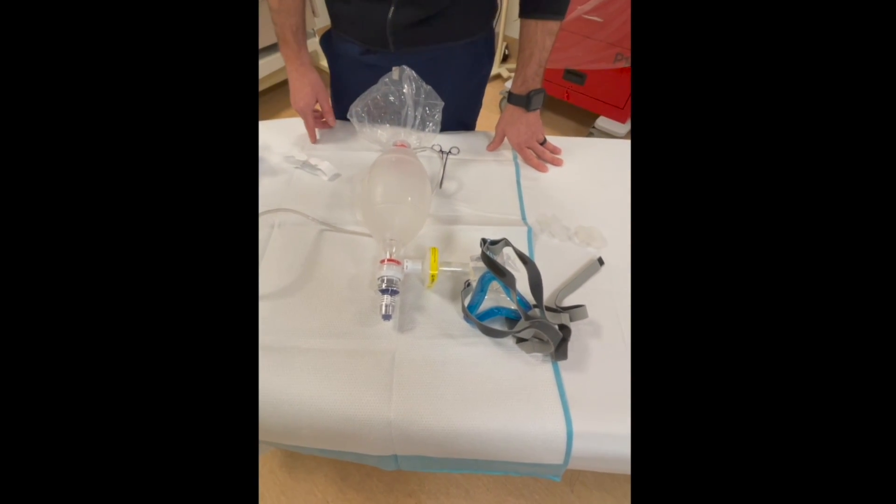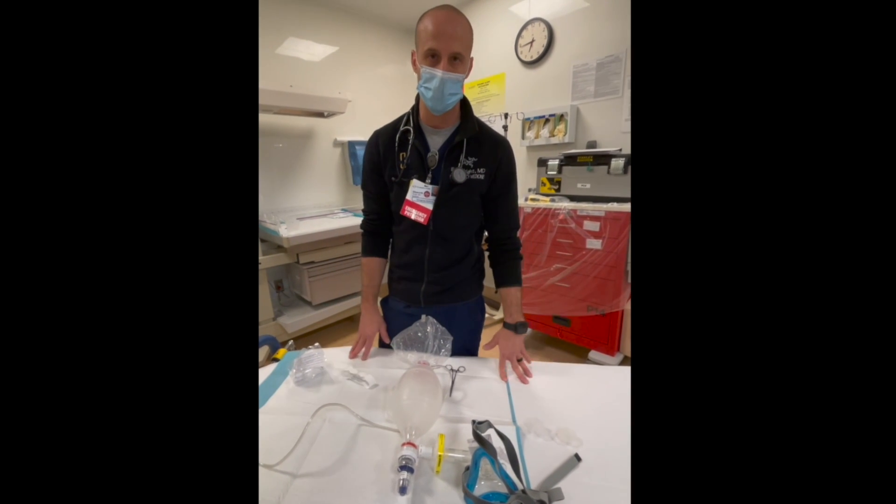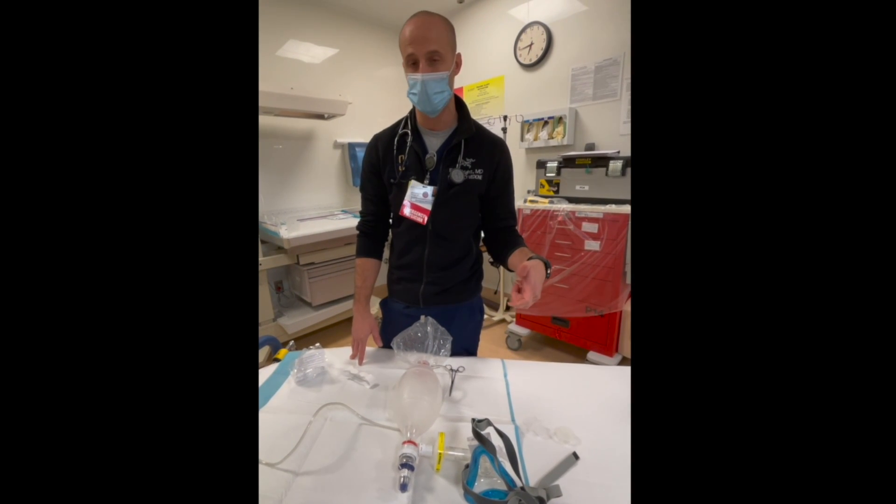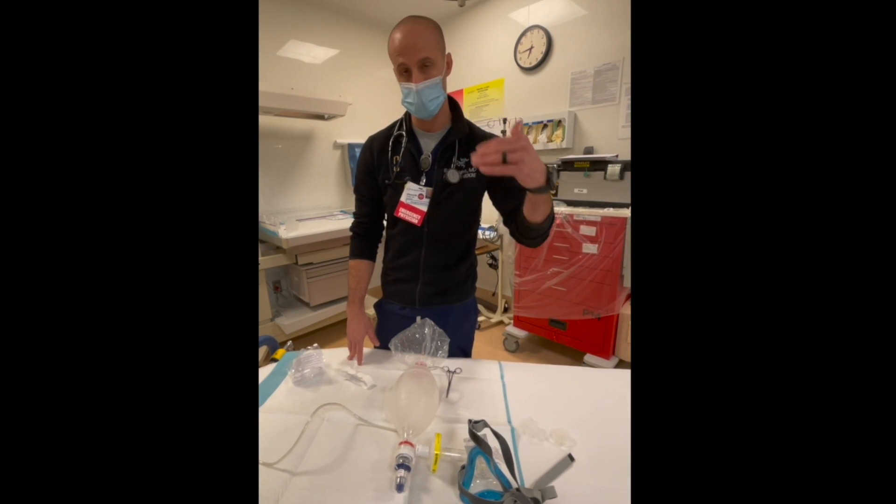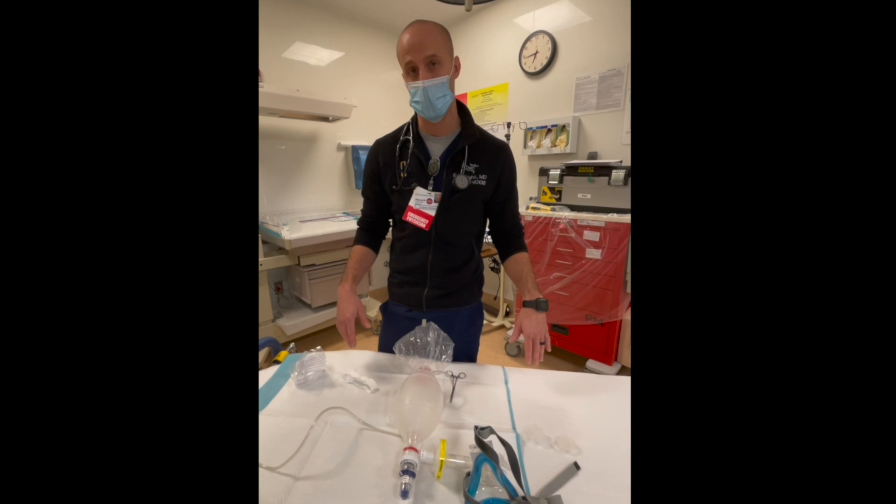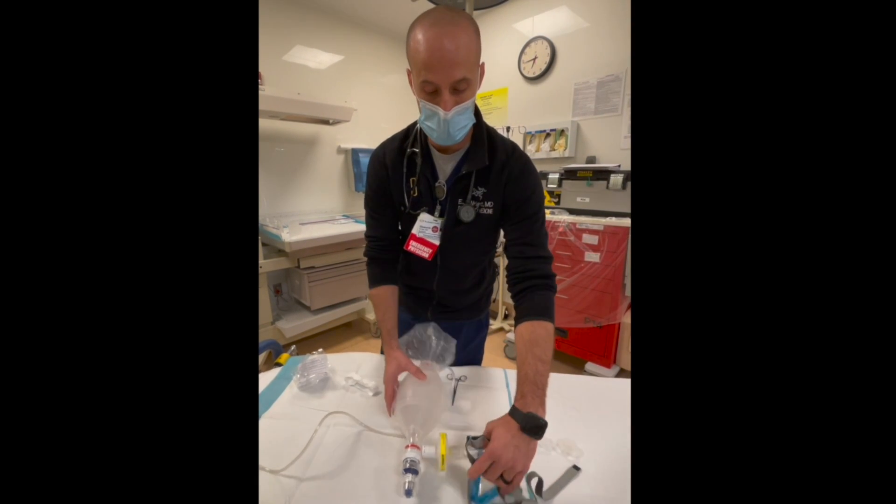This is a good utility when we're out of high flow and when we're out of actual official CPAP machines. Essentially this can just buy you a little bit of time until you can develop definitive management. A lot of times you'll actually be able to turn people around with this and titrate down to a Venti mask.